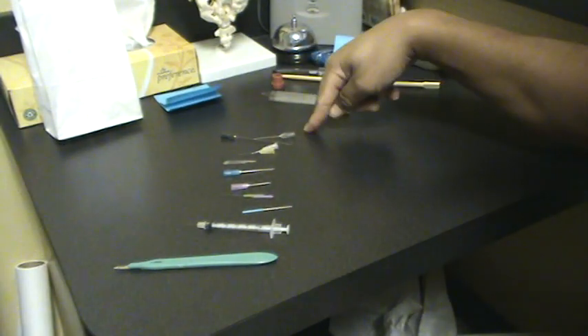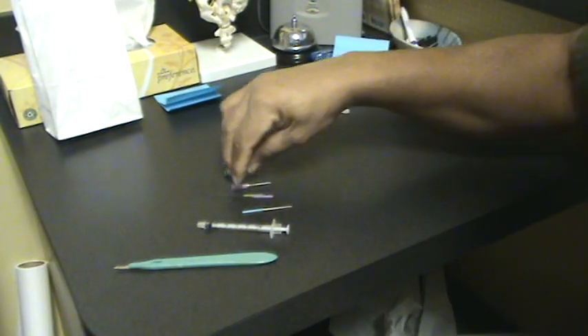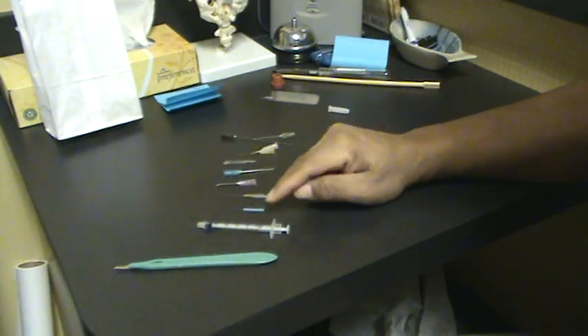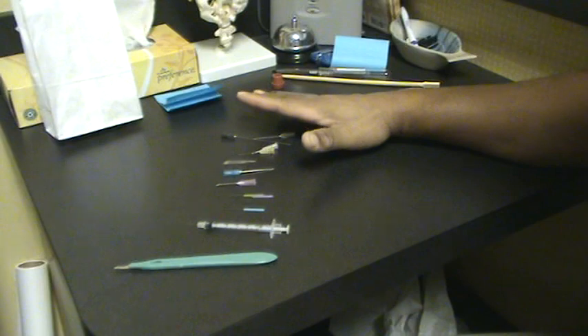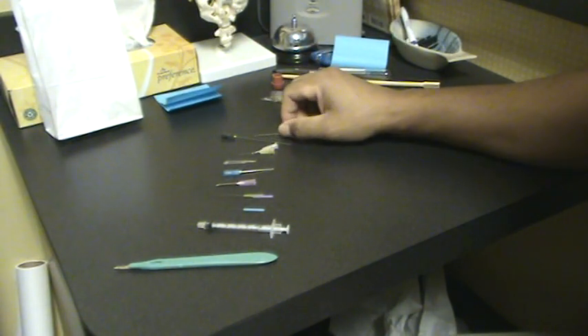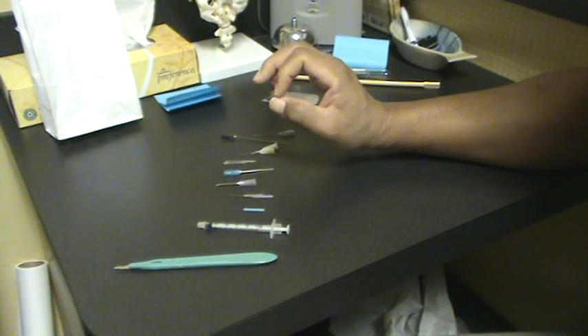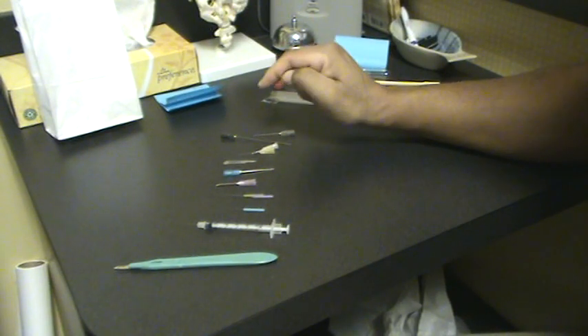All these are the same — they do the same thing. All of them are made out of plastic and stainless steel. So they only do two things: one is that they pierce the tissue, and they cause microscopic bleeding.